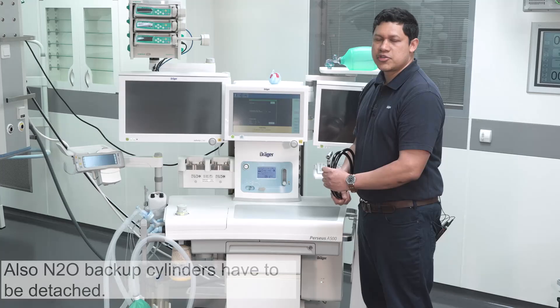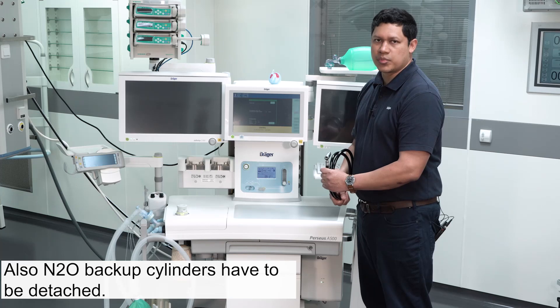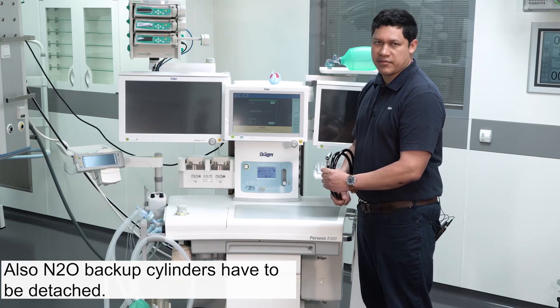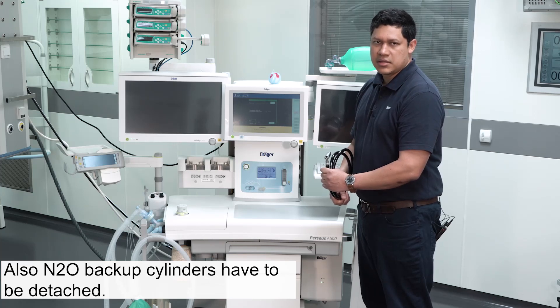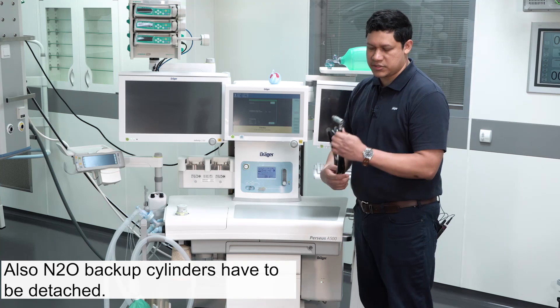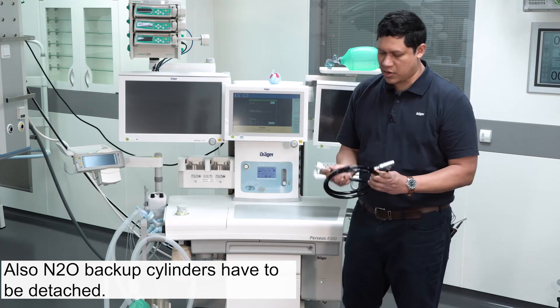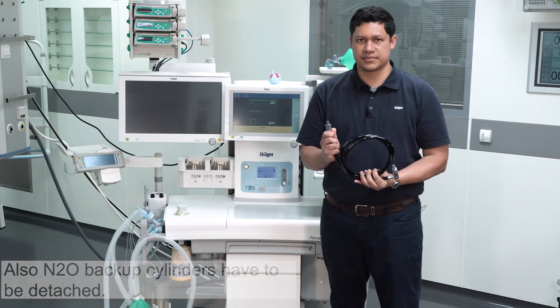Make sure nitrous oxide is not supplied to the anesthesia device. Disconnect the hose from the source first and then from the back of the device.